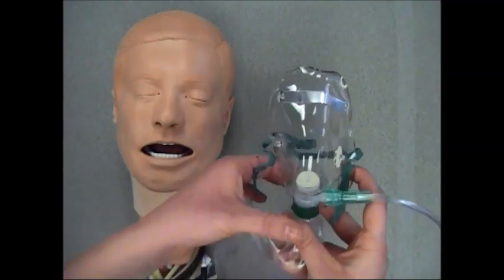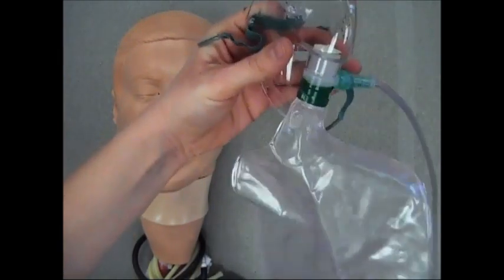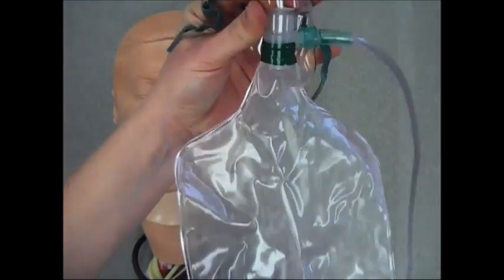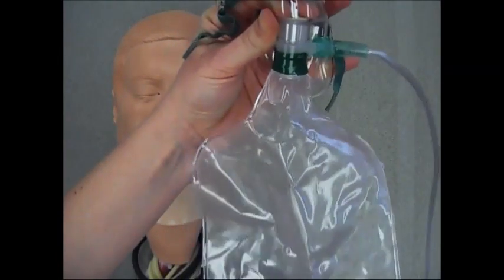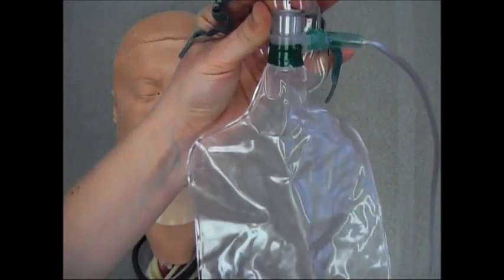The reservoir bag is attached to the mask here. The reservoir bag should be filled up with oxygen prior to applying it to the patient.